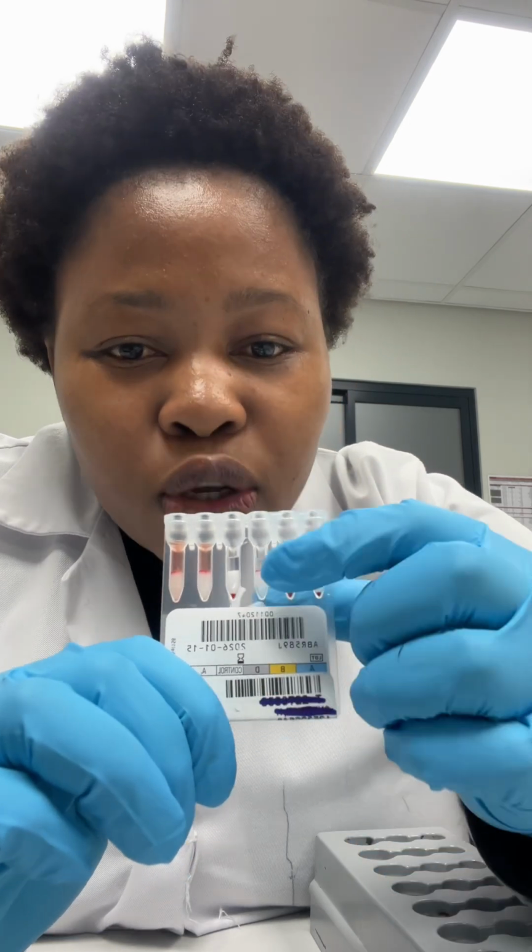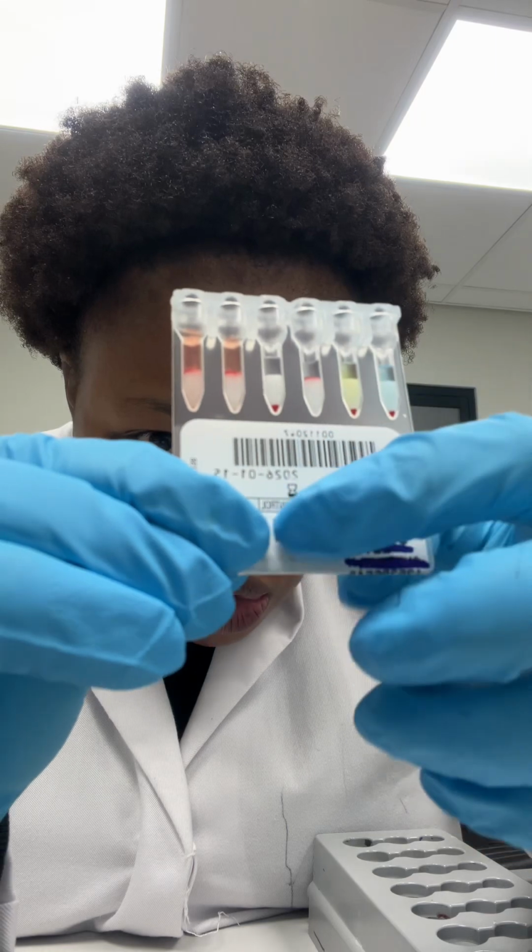And then this D, it's part of the RhD system. It determines whether a patient is Rh positive or Rh negative. You see there's a line there at the top. So the D is positive, meaning that the patient has D antigens on their red cell surface, meaning that the patient is Rh positive. And then the control, so this is the control.